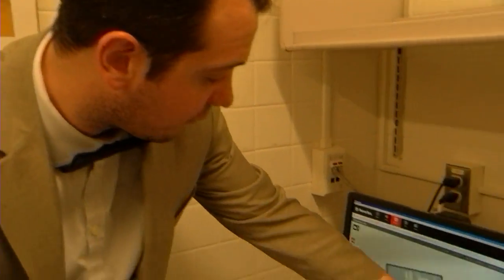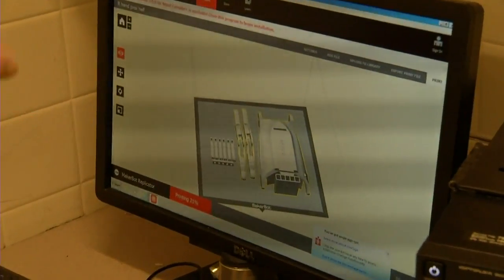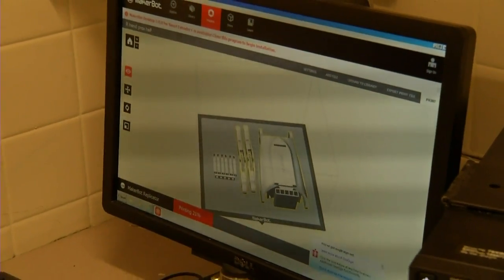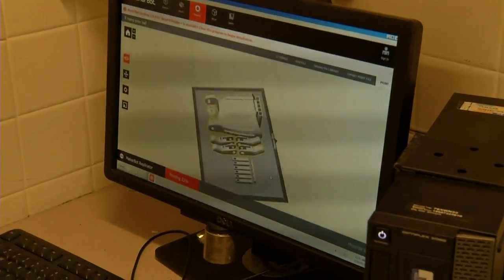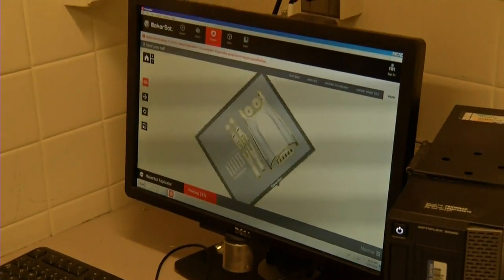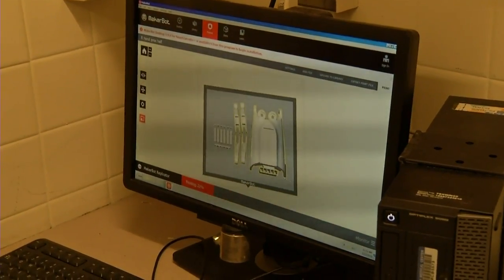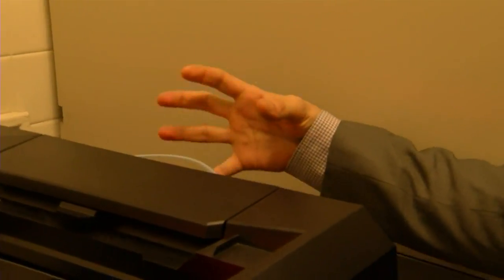This is as large as the print bed can go, which is why this hand is going to be printed in two different runs because it doesn't fit all at once. We have all the parts laid out here, and you can measure them and change the size because there's a one centimeter grid right here.